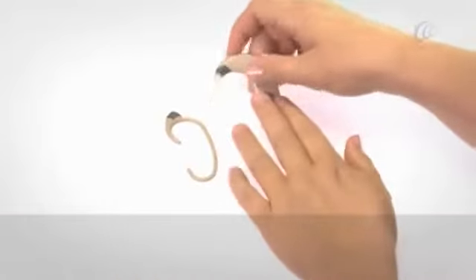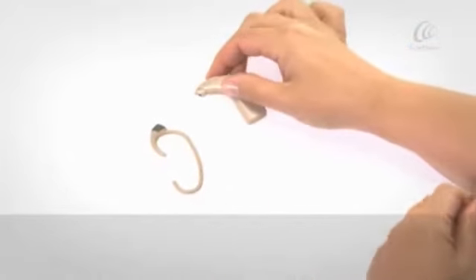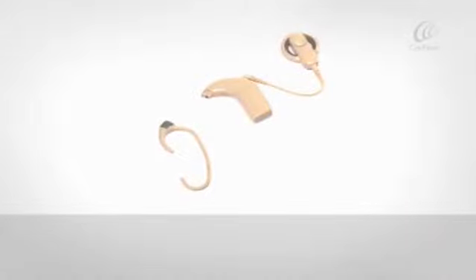Attach a SnugFit by pressing firmly on the top of the earhook with your thumb to click the earhook off the sound processor.